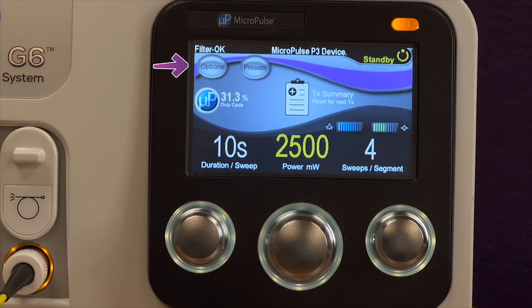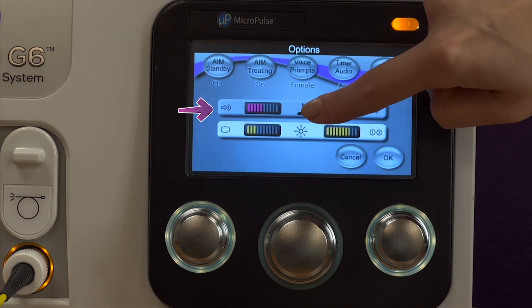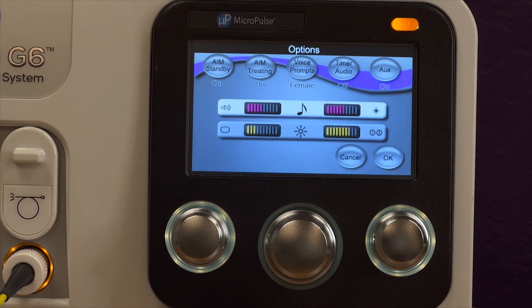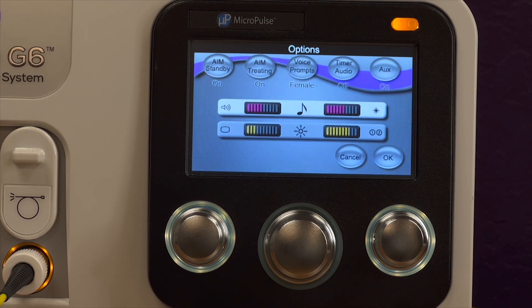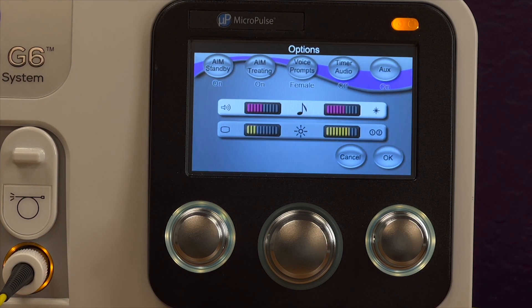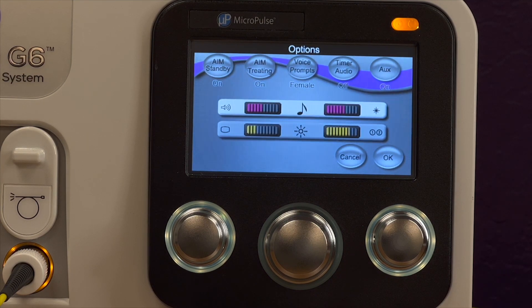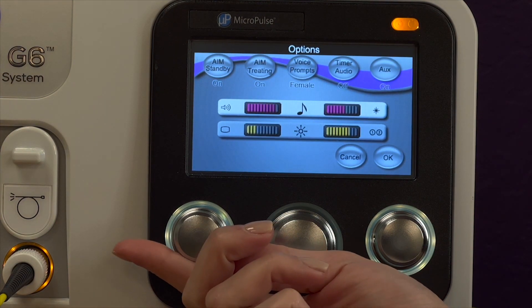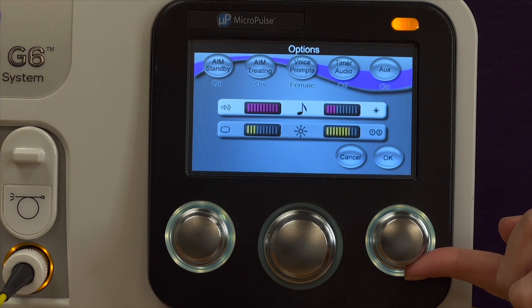Select Options to adjust sound settings. Press on the top bar to activate the sound adjustment options. The software allows you to adjust two types of sound: one is the laser firing sound, and the other is the various system sounds, including clock ticks and tone notifications during the treatment. When delivering Micropulse TLT, it is recommended that system sounds are set louder than the laser firing tone. The left control knob adjusts the volume of the system sounds, and the right control knob adjusts the volume of the laser firing tone.